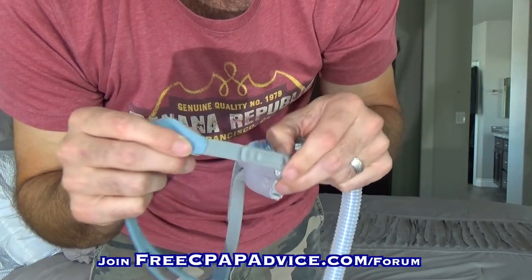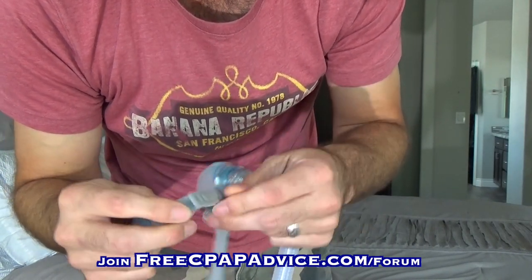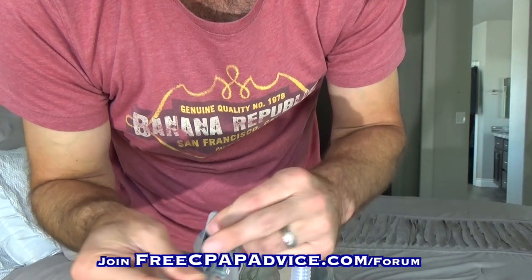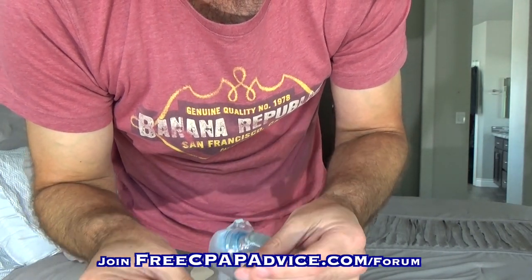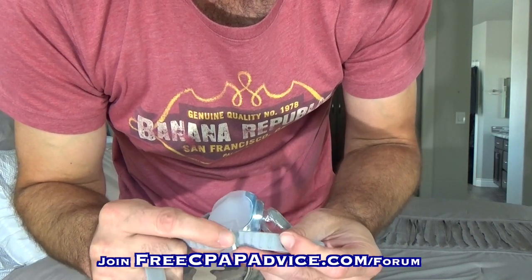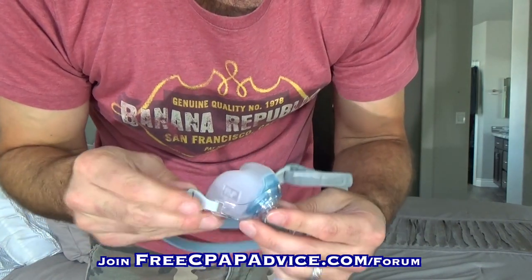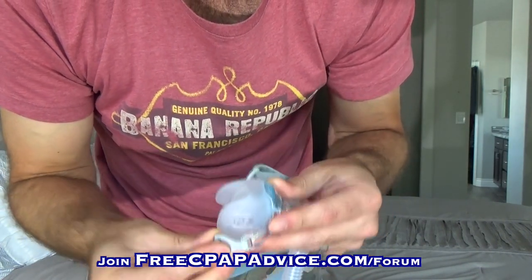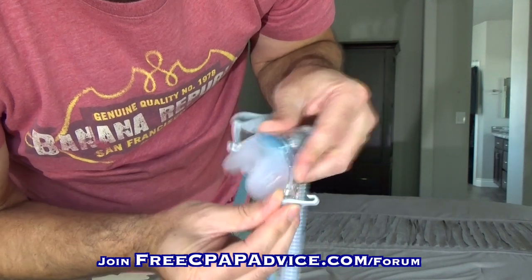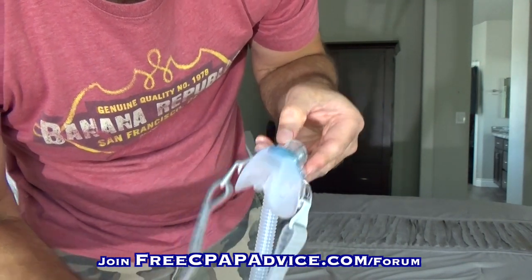With the headgear, they're sticking with the older headgear, which is not bad — it's good and quite durable. It has this Velcro which doesn't fray the material over a long period of time, and it has these little ridges for ratcheting to keep it in the right spot. If you want to take it off and wash it separately, there's a kind of hook here — just push it in, unhook it, and you can snap it back on pretty easily.